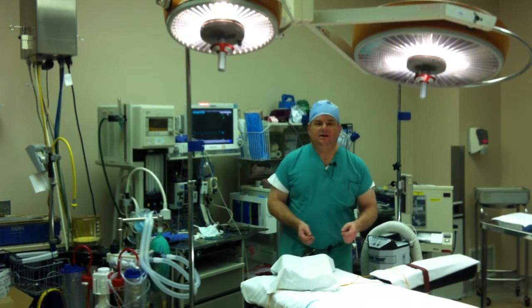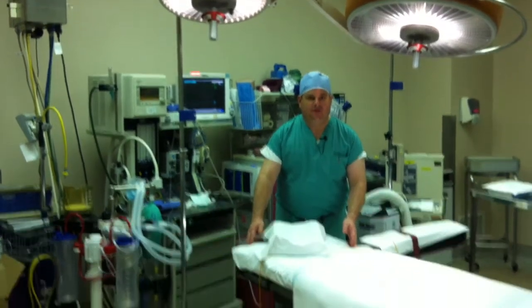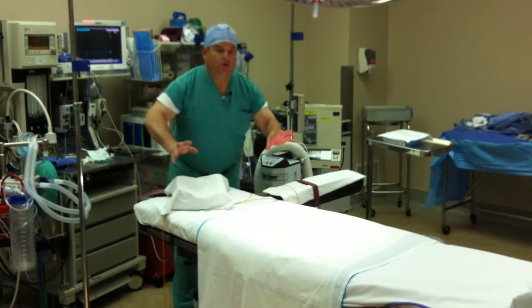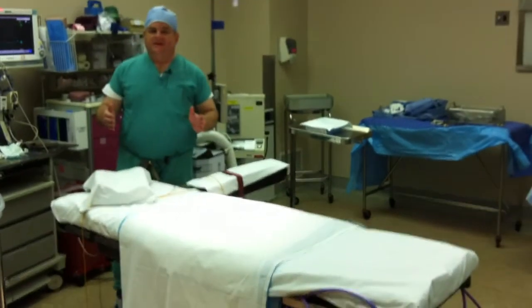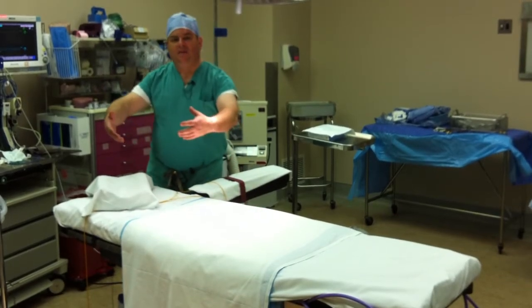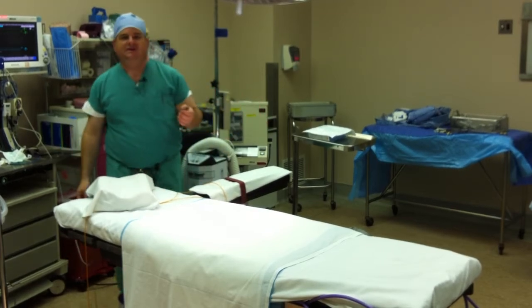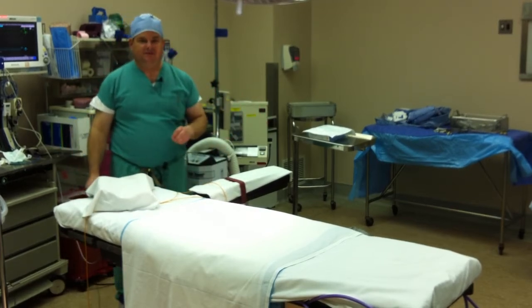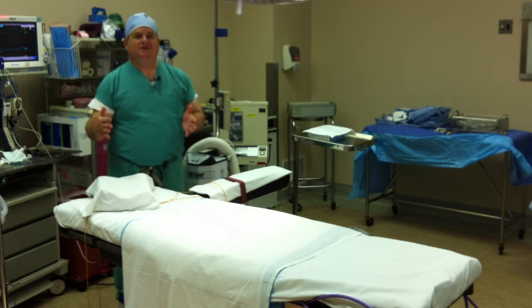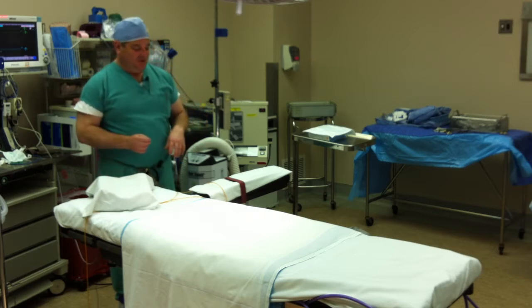Now let's look here at the operating room table. This is the table that you're going to be lying on during the surgery. As you can see, it's very thin, and that's on purpose. And the reason we have a very thin table is that we have to stand up next to the table and lean over to operate. If the table were wide, more like a regular bed, it would be very difficult to get to the areas that we need to get to operate safely. It is a little scary when you get on it because you realize you're on this teeny little table and you're afraid you're going to fall off. Don't worry, we won't let you fall off, and we'll get you positioned properly.